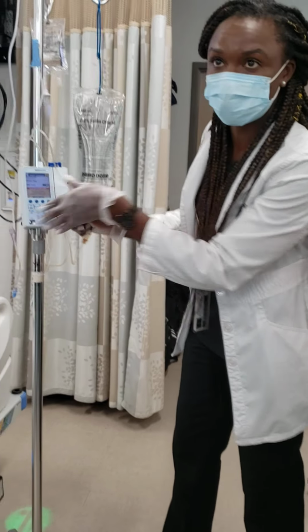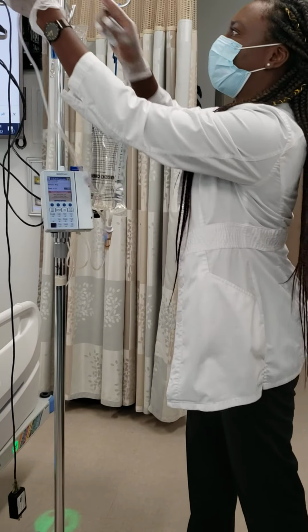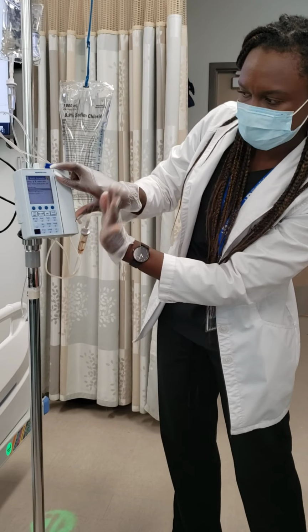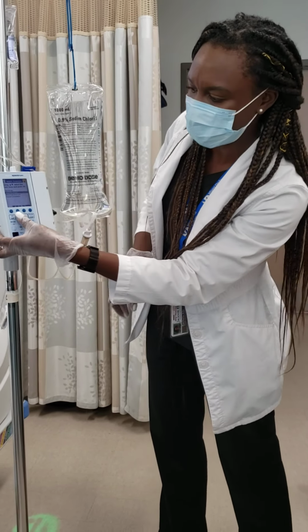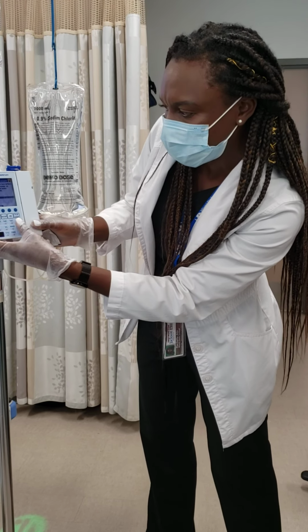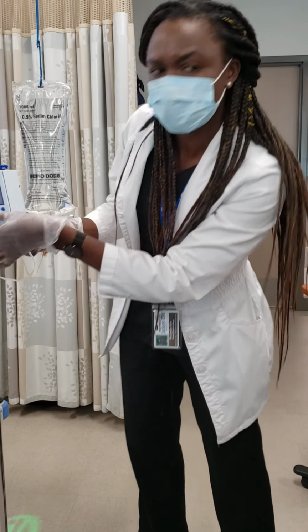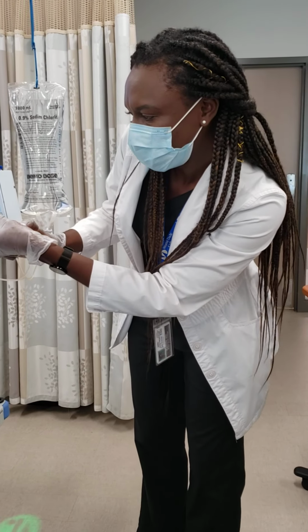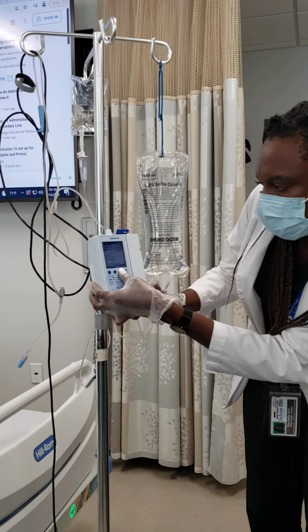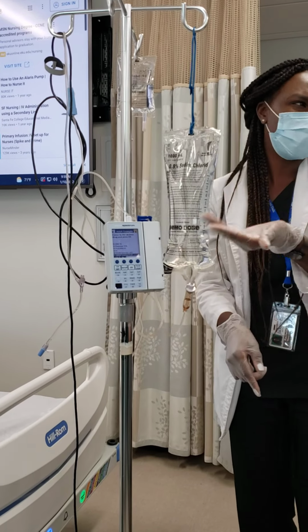So now I'm going to clear the program so y'all can see it. I know it looks a bit washed out. I don't know why the pump looks like that, but okay, we're going to clear everything out and start from the beginning. So I'm going to start as adult, and I'm going to do a primary line. Let me see if it programs as IV. Okay, IV maintenance. I'm sorry, you guys, I'm all in the way here. Yeah, IV maintenance fluid. That means it's just the primary bag. That's how they call it on this pump.